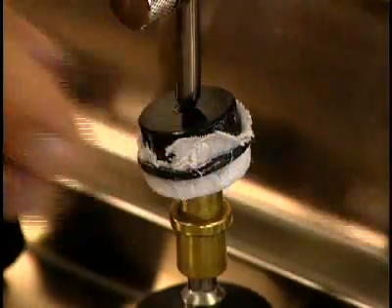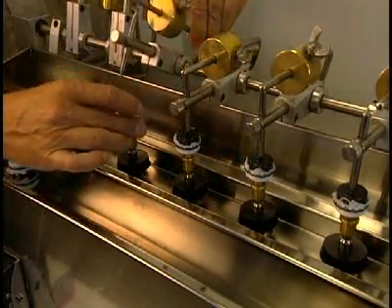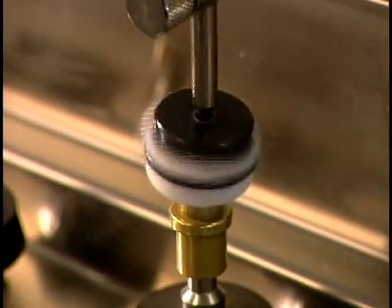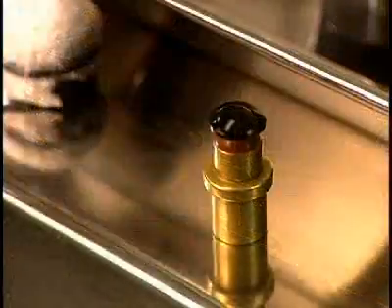They now polish the outer surface of the lens. This polishing, done at high speed, calls for an abrasive paste, some oil, and a small polyester cotton ball. This apparatus polishes several lenses at the same time, a step that takes only 60 seconds.